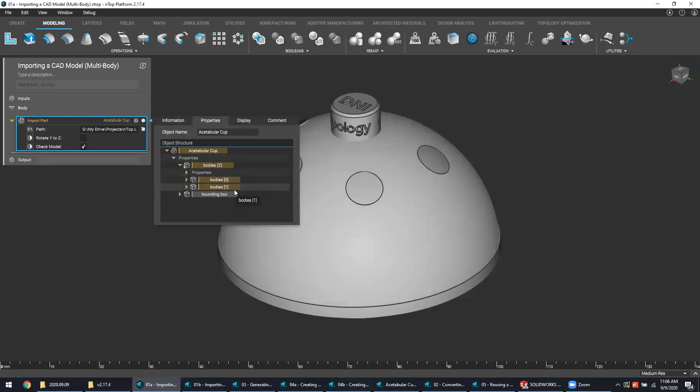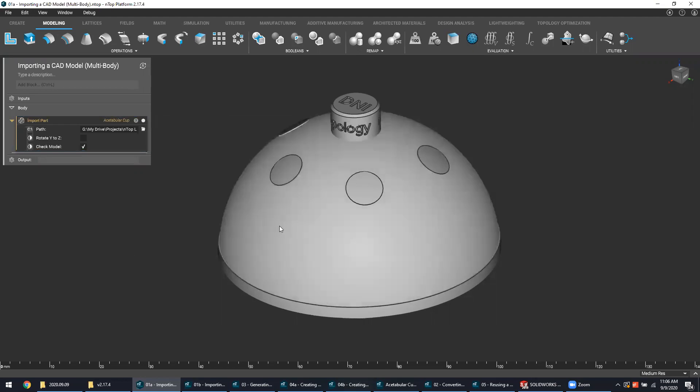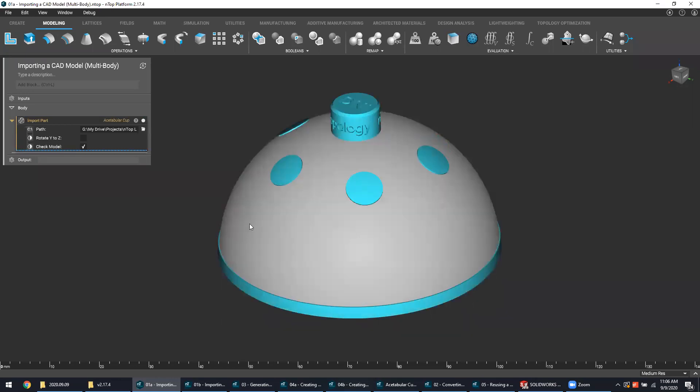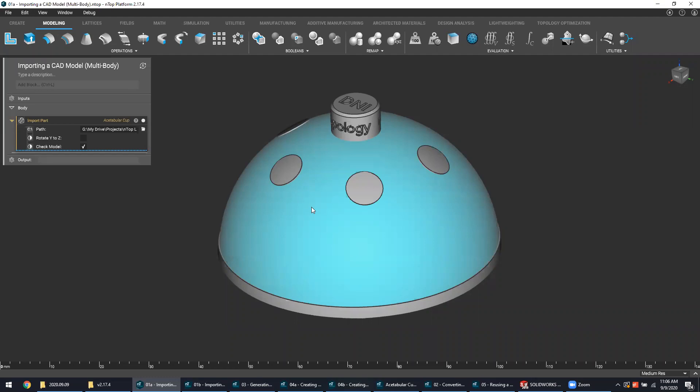It's not immediately discernible which of these is which, so the best way to interact with this is actually in the 3D environment. You can see that I can select the body that's intended to be the solid region, and I can also separately select the body that's intended to be the lattice design region. Now as a note, this works for a two body solid pretty effectively, but if there is a possibility for your arrangement or assembly to be a bit confusing, it's also possible to manage these regions as distinct bodies and import them separately.